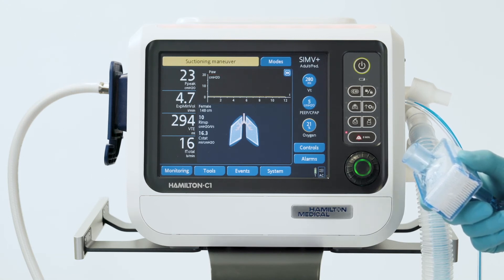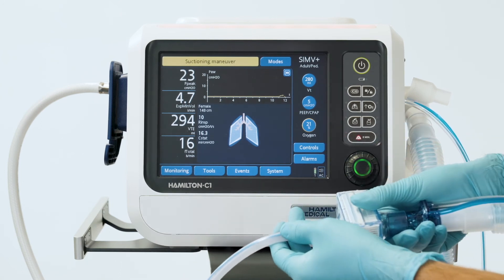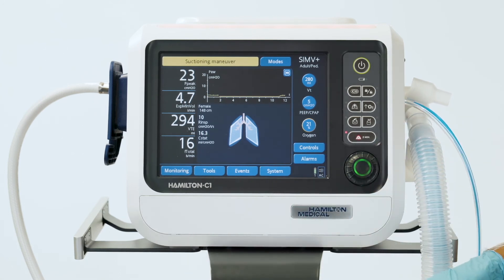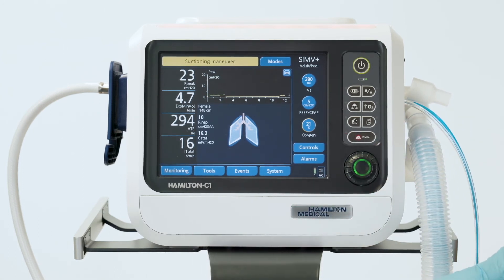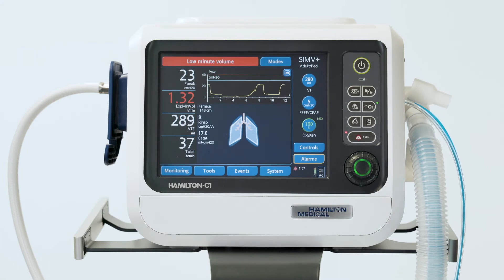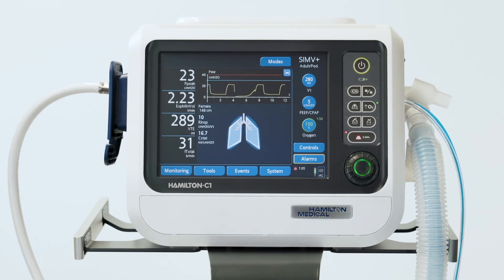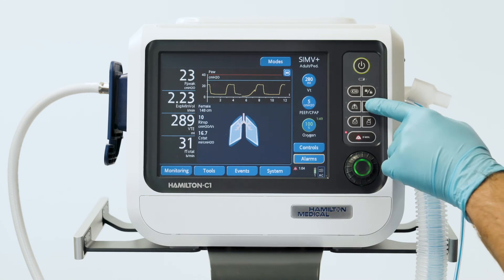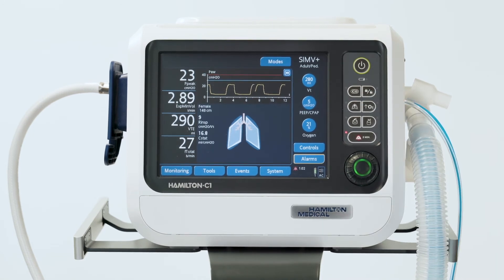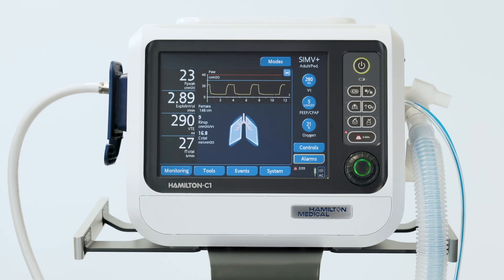Once you've finished the maneuver, reconnect the patient to the ventilator and the post-oxygenation phase starts. All acoustic alarms are suppressed for one minute more. If needed, you can always terminate the pre- and or post-oxygenation maneuver at any time.